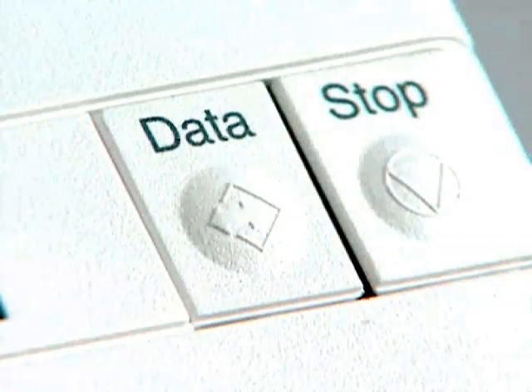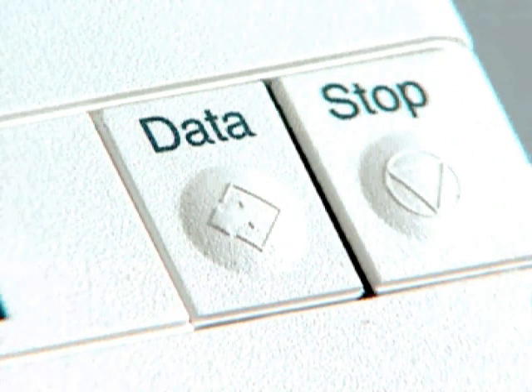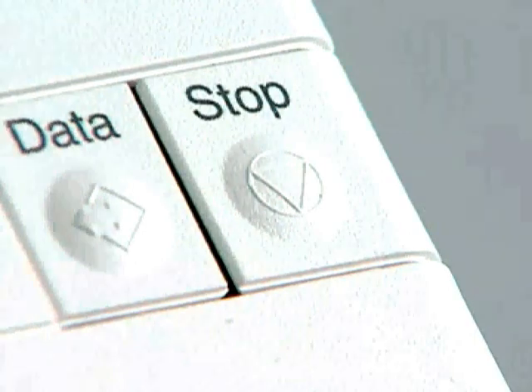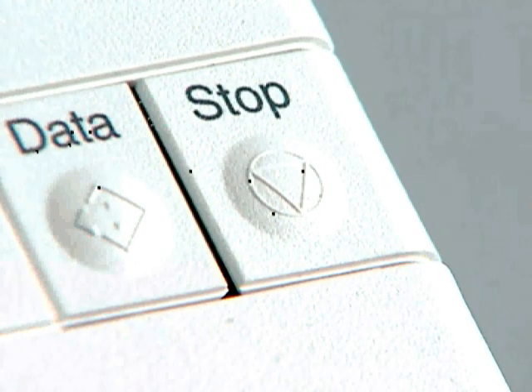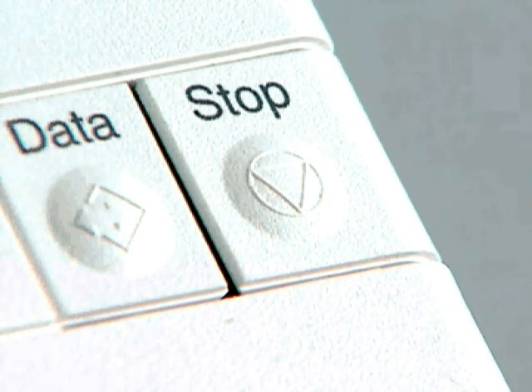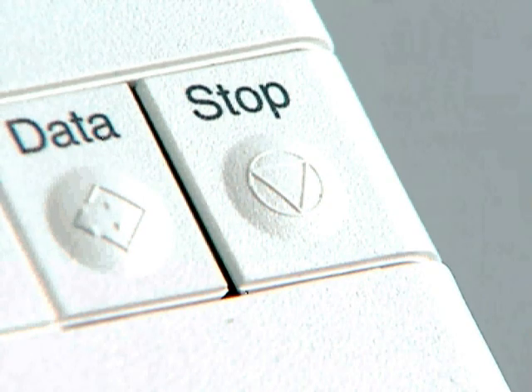The Data button allows the user to view the last reported results and to obtain any calculated results. The Stop button closes the cassette drawer at the end of the testing period and allows you to interrupt the test that is in progress.